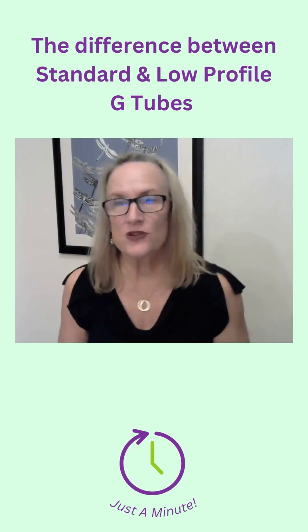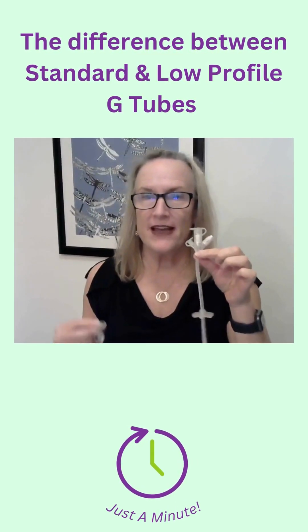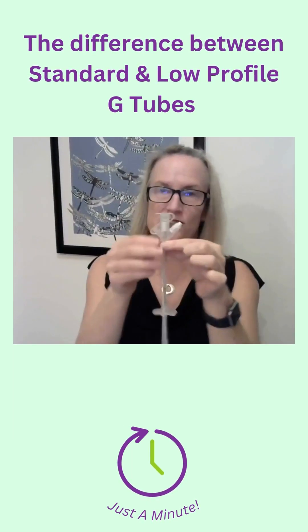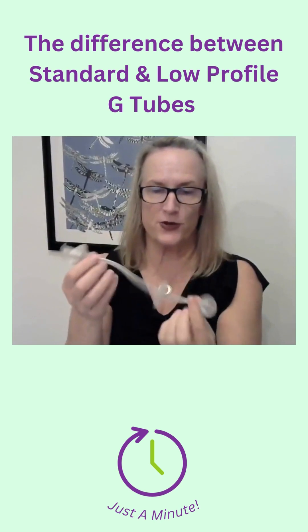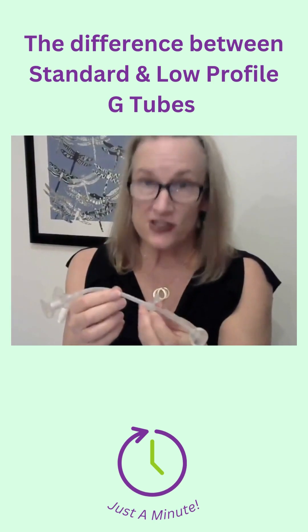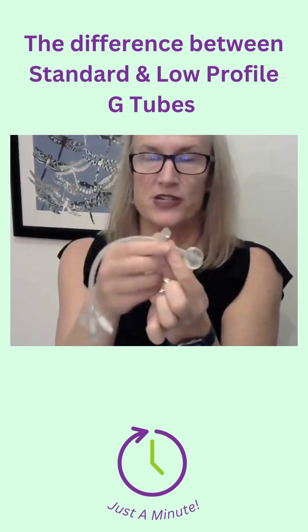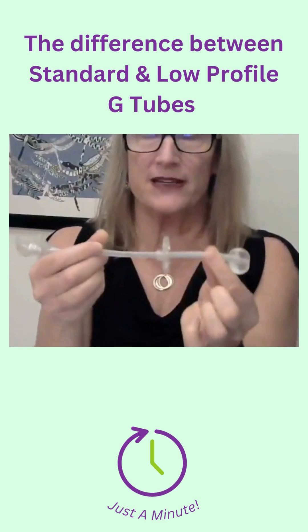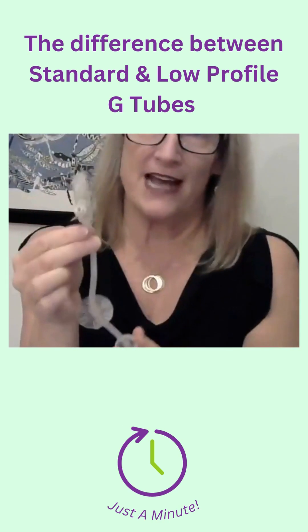I'm going to take a minute and show you the difference between a standard profile tube and a low profile tube. With your standard profile tube, this is essentially a one-size-fits-all tube, and the way that you can make accommodations for changes in weight is to move this external bolster up and down the tube so that it fits properly. With these tubes, the feeding port is attached at the end.